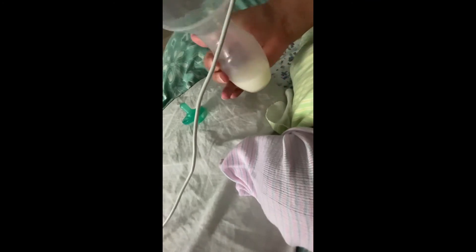While the baby is feeding on one boob, you put the Haaka on the other boob. You press it like this so it's already collecting — press like that, put it on your boob, and it will just suction your milk. The entire time your baby is feeding, you're collecting milk from the other boob. By the time he's finished feeding, I'll then do the breast pump on both breasts.